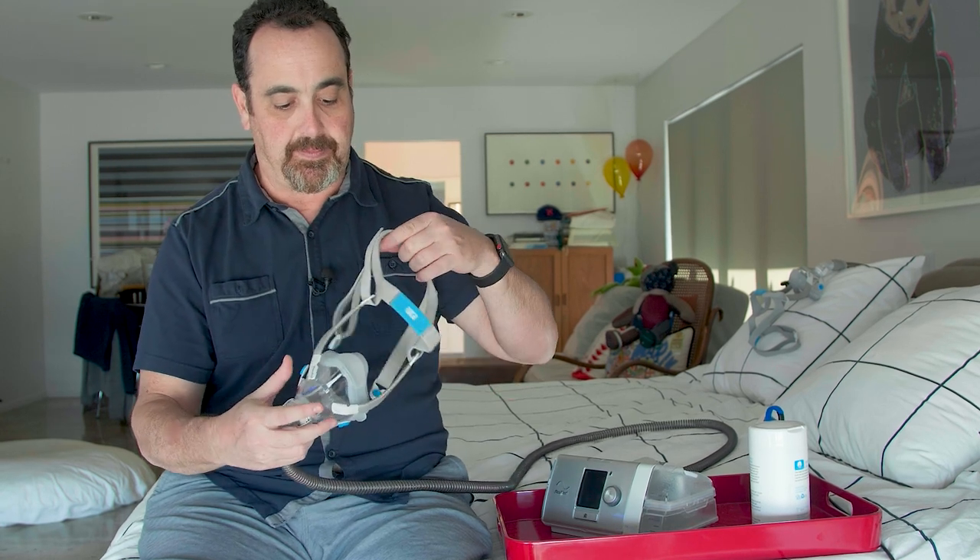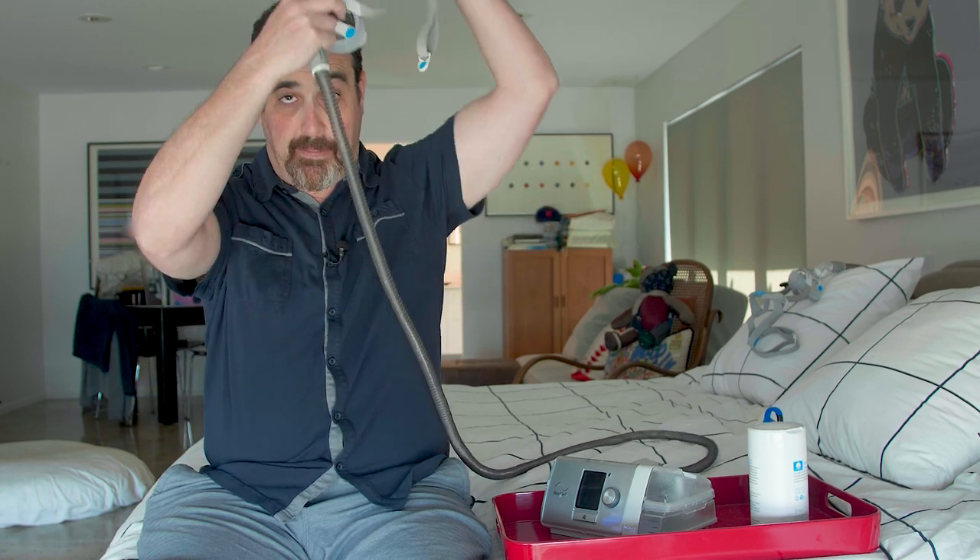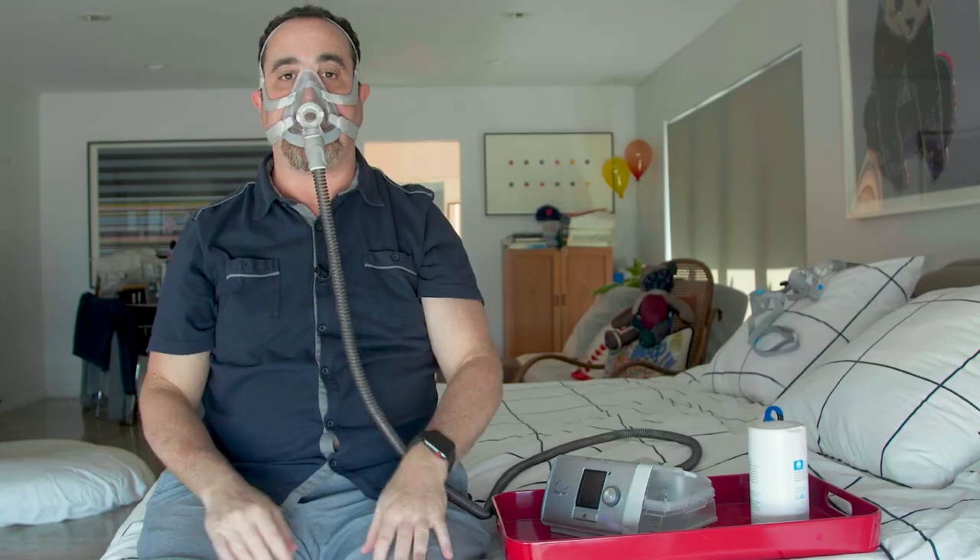For me, I've been doing this so long it's second nature — it's like a motor skill. I put my mask on, pull my headgear over, fix my two bottom straps, and I go to sleep.